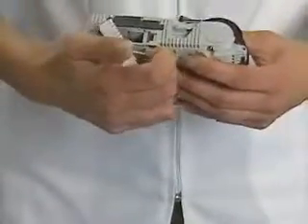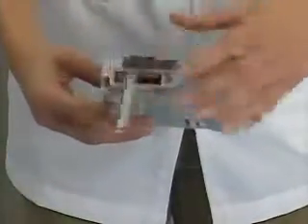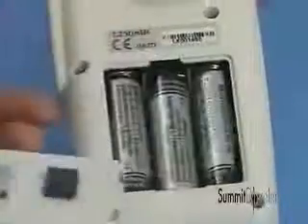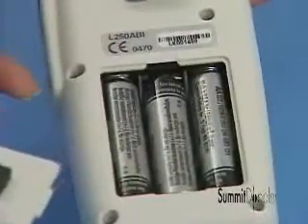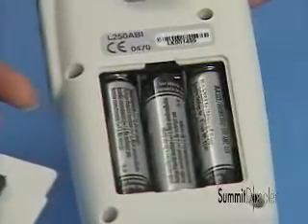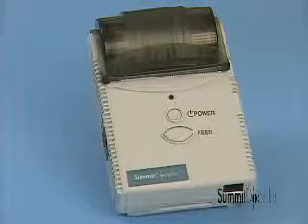To replace the printer's rechargeable batteries, open the battery door and release the secondary latch. Note the proper battery orientation. The battery label will be on the bottom. The LifeDop ABI's battery door is on the rear. Be sure to note battery orientation. The two on the side are inserted plus side down. The one in the center is plus side up. See your user manual for additional instructions and special precautions.